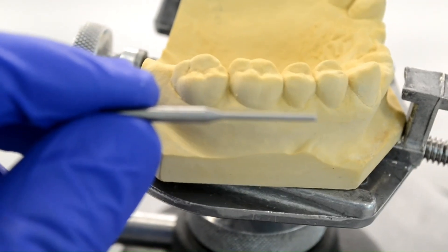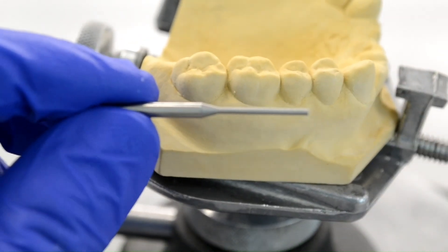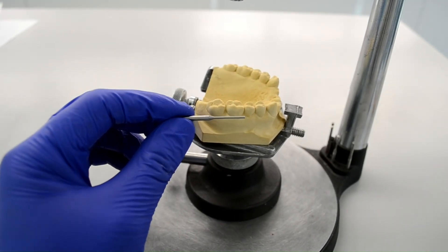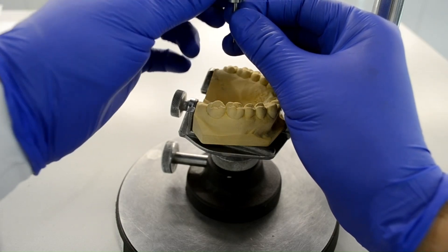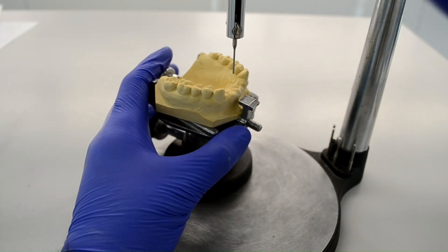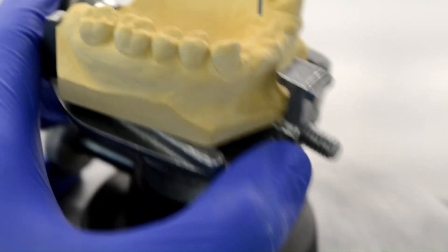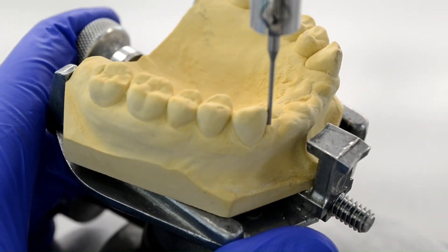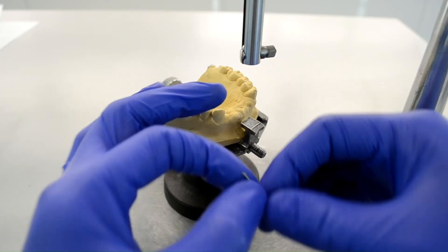The first step of surveying is to analyze the cast. This is done using the analyzing rod. We'll go ahead and put that into the mandrel. The goal of analyzing the cast is to identify a path of draw that would require the least amount of adjustment on the guide plane areas. The ideal path of draw would require even adjustments on all abutments, rather than no adjustments on some abutments at the expense of others.